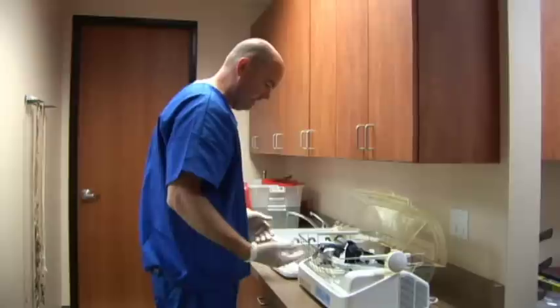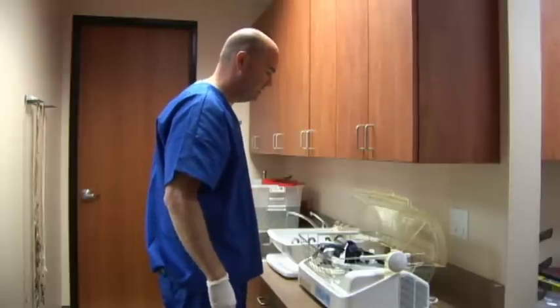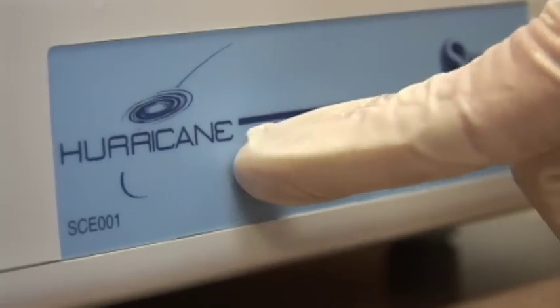What is this cool device here? Hey, this is new. This is our new CPAP hurricane dryer. What it basically does is we clean and rinse off all the stuff we used last night on you, put it here, and it's dry in an hour. So it's the best thing that's happened to the sleep lab. So how'd you get it dry before you got the hurricane?